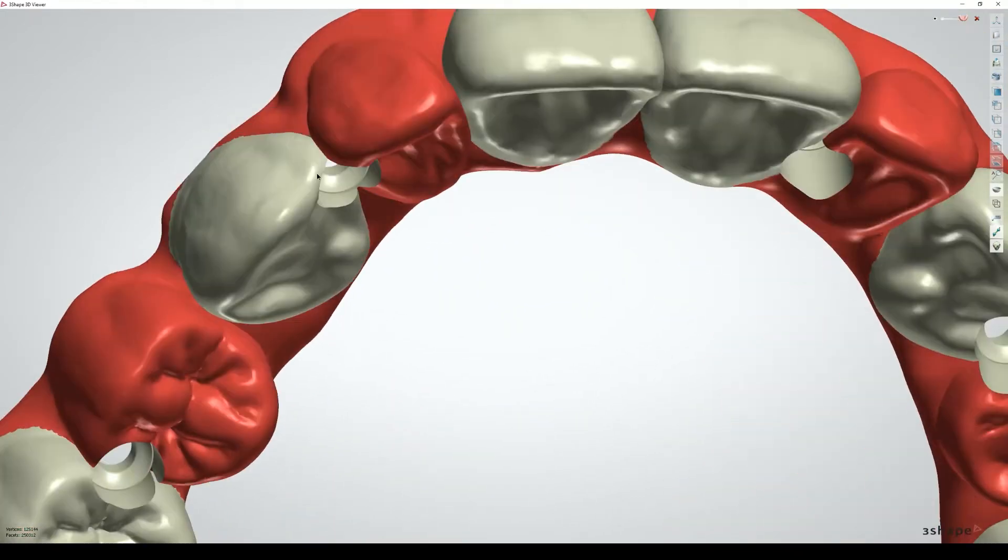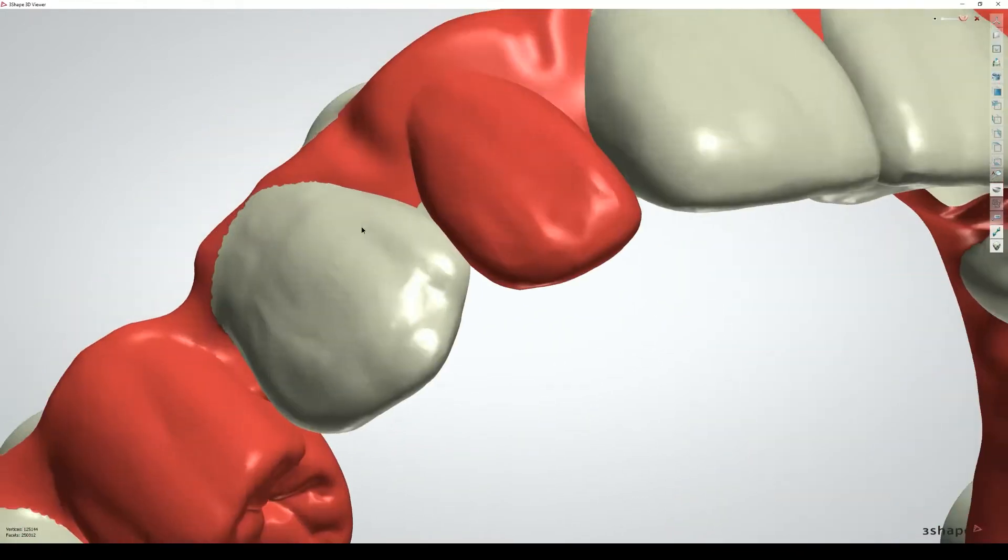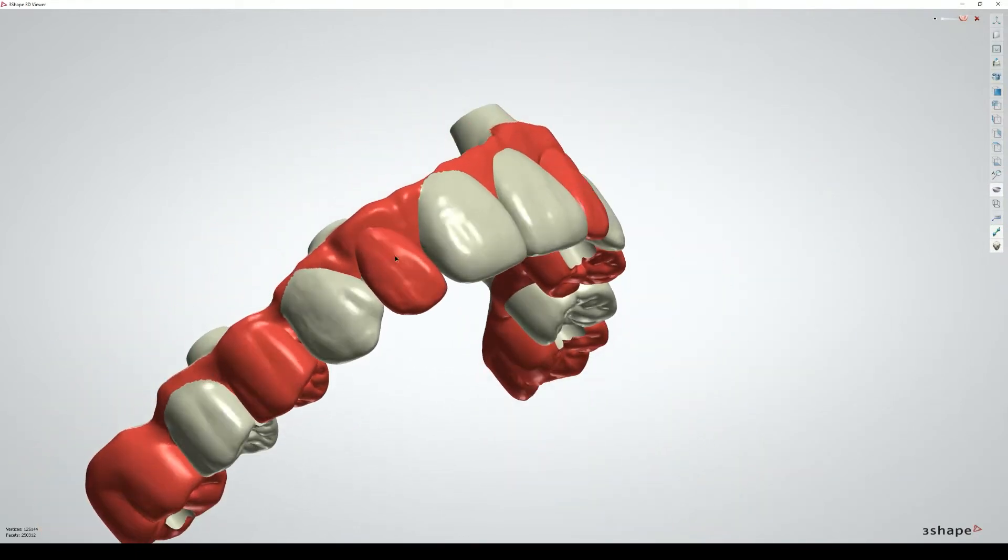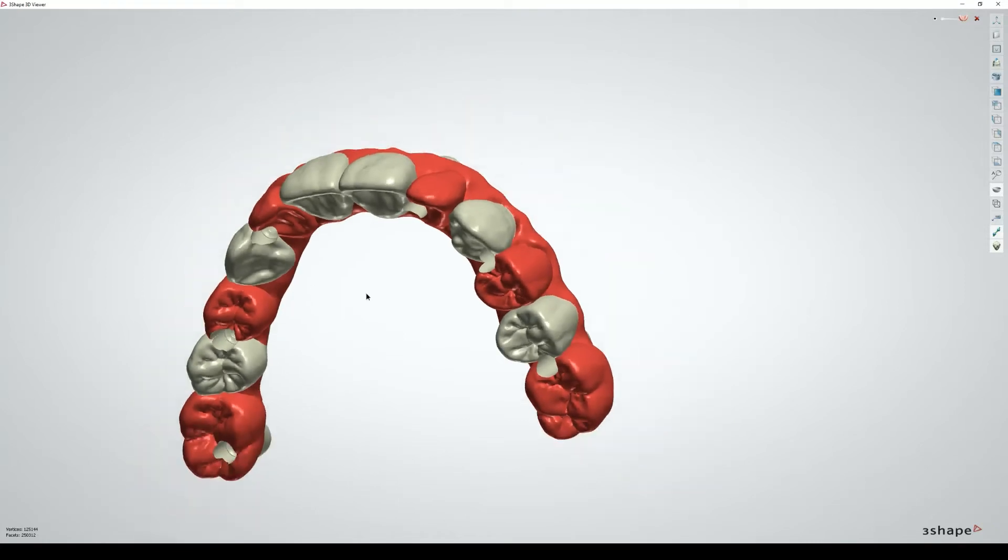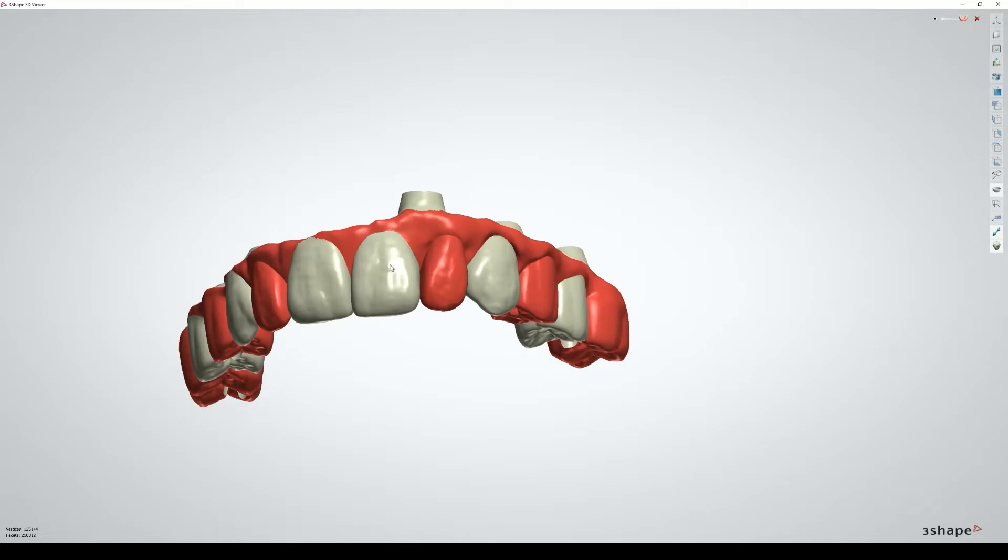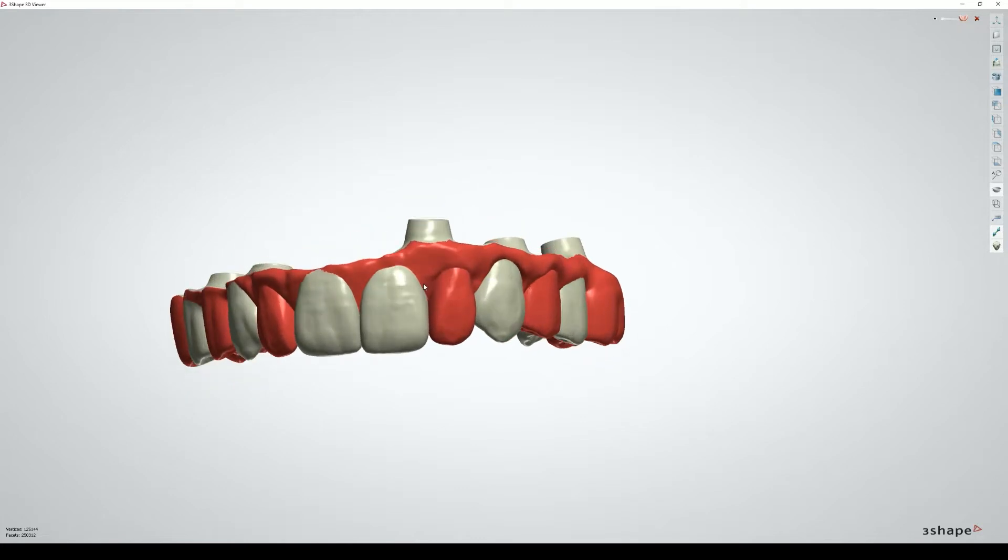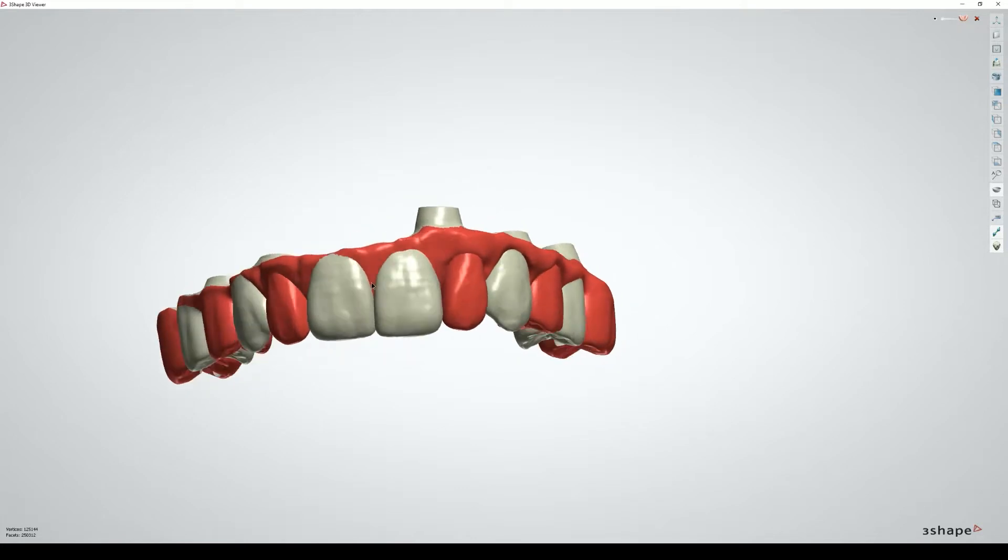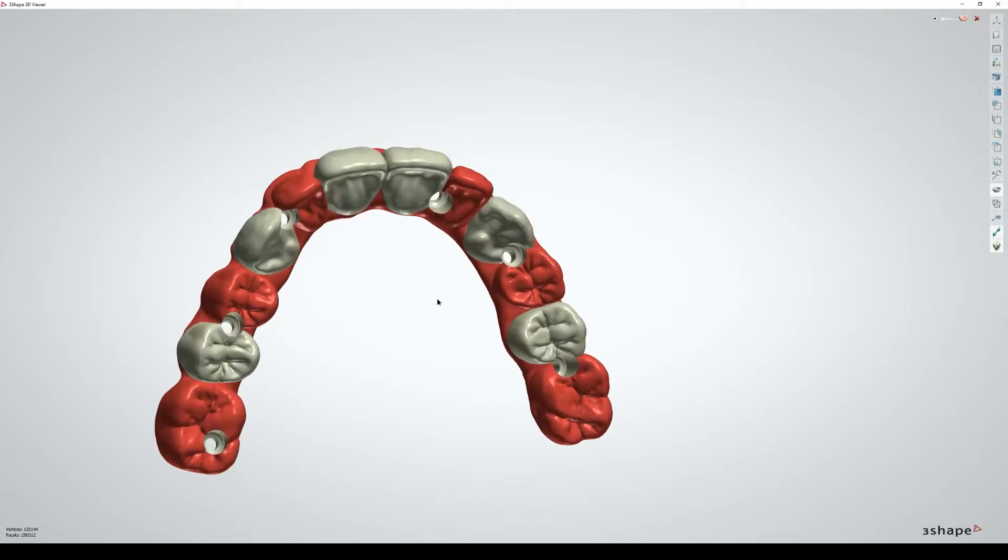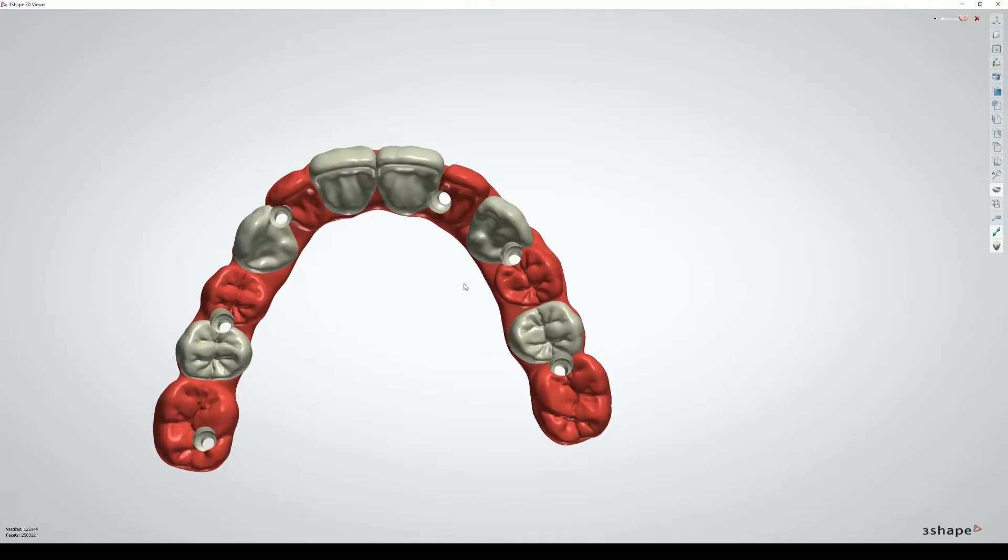His question to me was, should I just standard copy this, go back, and do a redesign on the original? My suggestion is always to do a standard copy. The problem with big cases like this, especially if you're working with gingiva, is sometimes it messes up some of your sculpt tools, so you could end up wasting 5-10 minutes, sometimes 20 minutes just going back through the redesign.